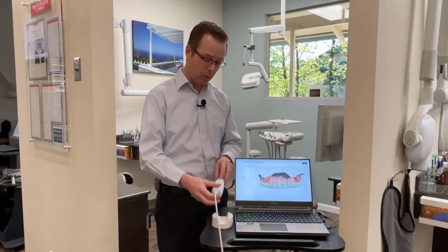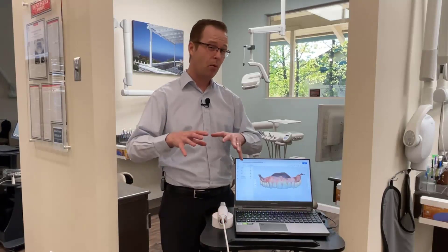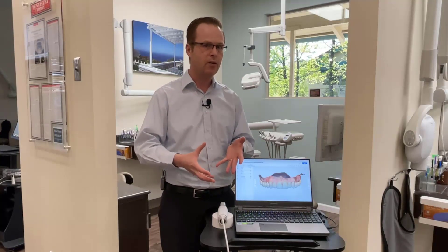In addition, in this COVID world, having a UVC tip seems like a novelty, but it's going to be pretty cool, especially when patients see that you're cleaning the scanner using light. We're all now familiar with UVC disinfecting in this post-COVID world, so I thought that was pretty cool.